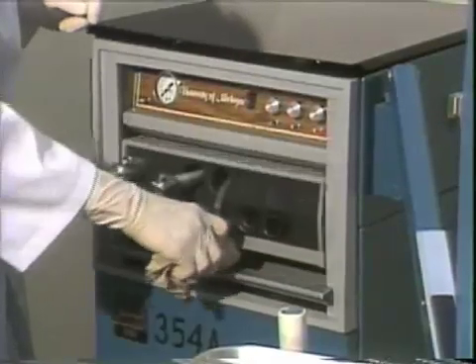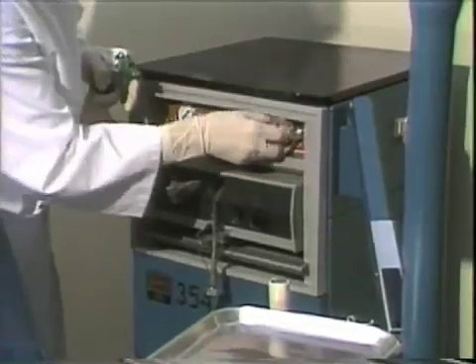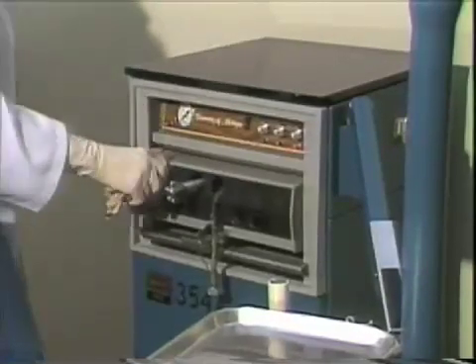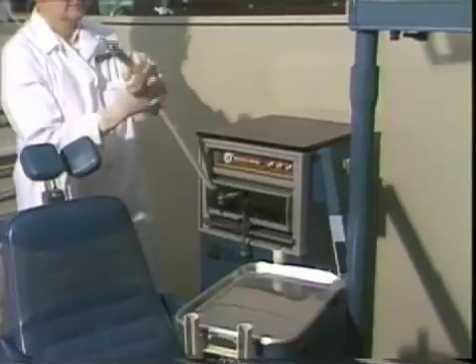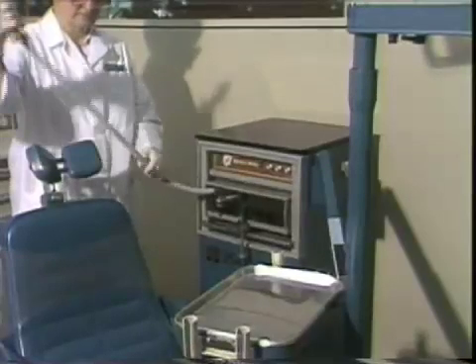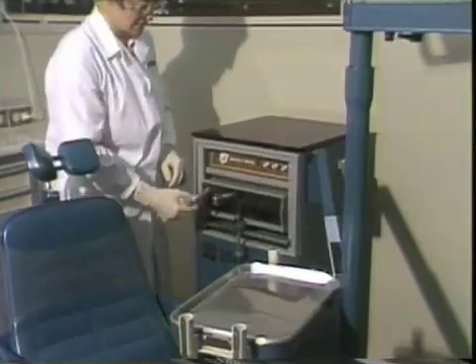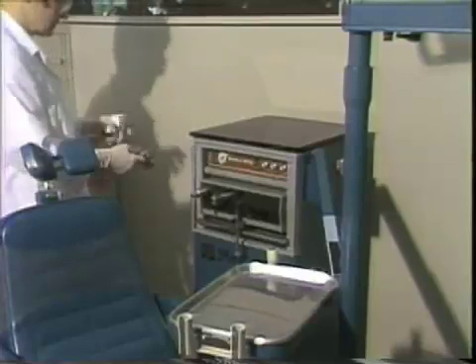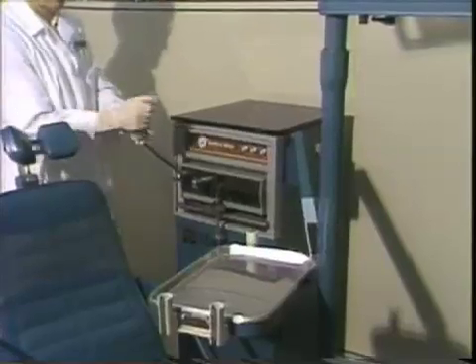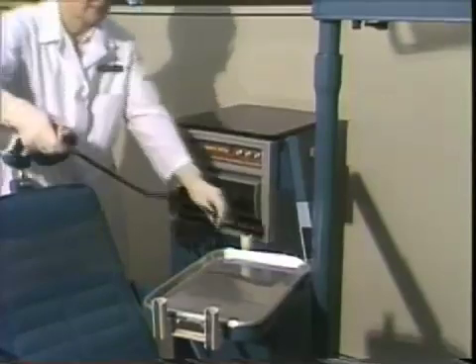Wipe the T-handle and pull it out until it locks, then wipe the control panel. Pull on the connector line to set the brake and wipe with the surface disinfectant. Seat the instruments and holders on the tray.